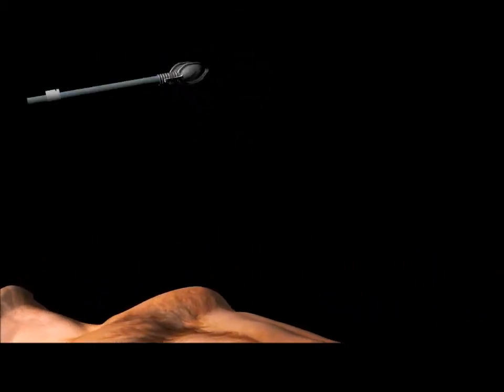Now you are looking at an animation that demonstrates how ADAM would be used on a live patient.